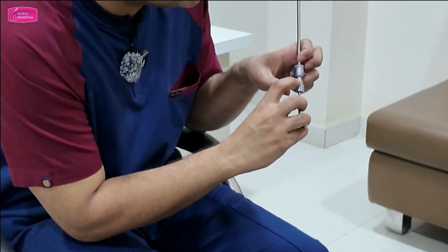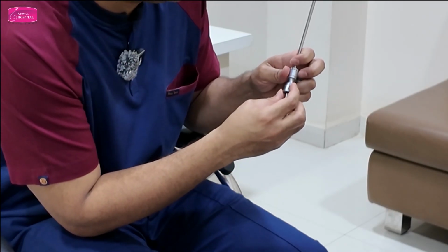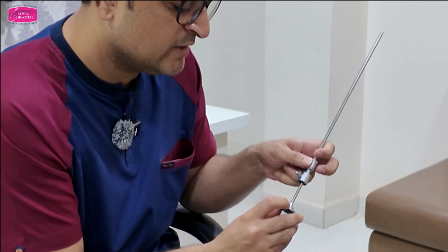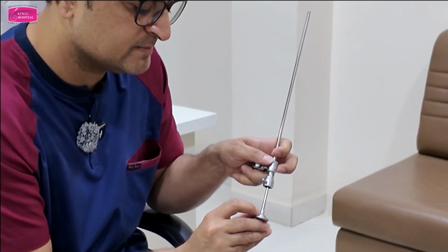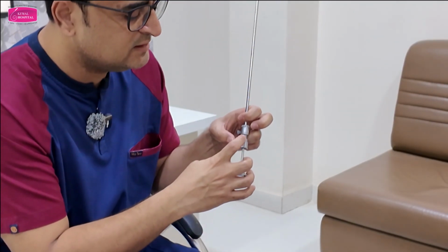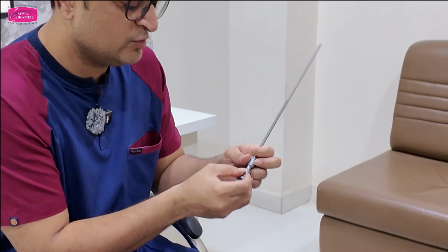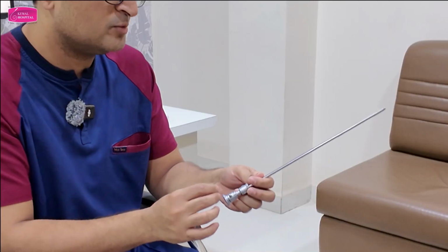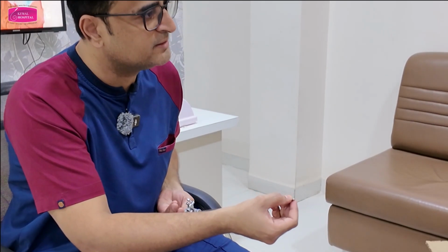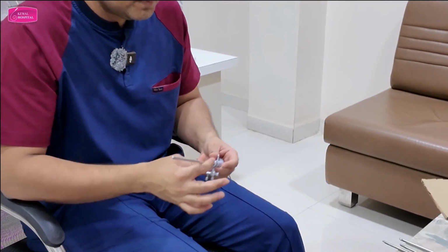Can you see these two lines, 1, 2? Whenever you lock it like this, to open the lock you have to align them. When you want to introduce the obturator, you can see there is one notch on the obturator. Can you see this notch here? You have to align 1, 2 and 3, then only it will get locked. Then rotate this, so it is locked now. The obturator is used to support the sheath so that the tip doesn't bend, otherwise it will injure the uterus. Understood about this?